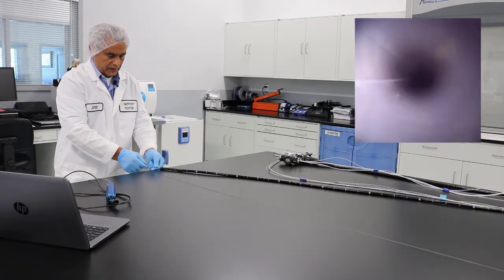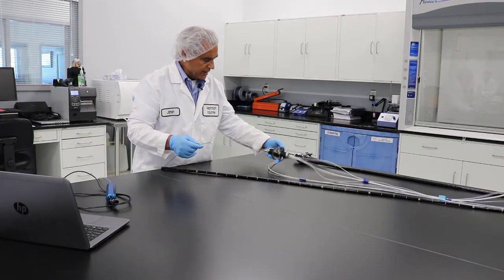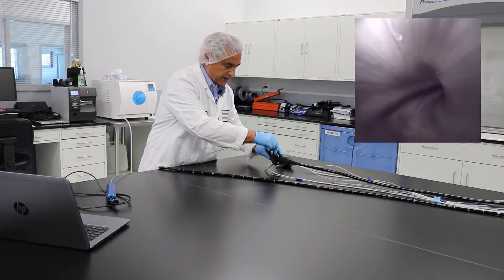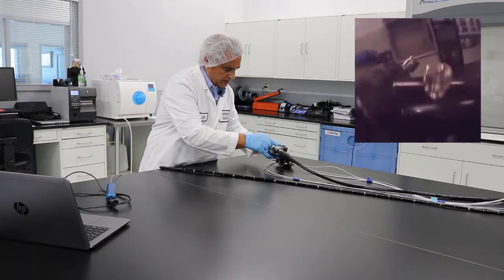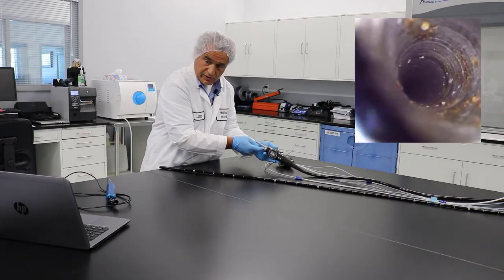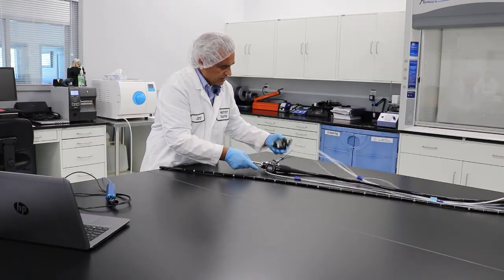Right now what we did was the biopsy suction channel on this area, but obviously you have the rest of the scope and you can use the inspection scope to see if there is any kind of debris. You will have a lot of 90-degree angles again — you don't want to go any further, just take a look. Here's your air-water channel, here's your air channel, and you can see there is some debris inside, along with rust and debris buildup.